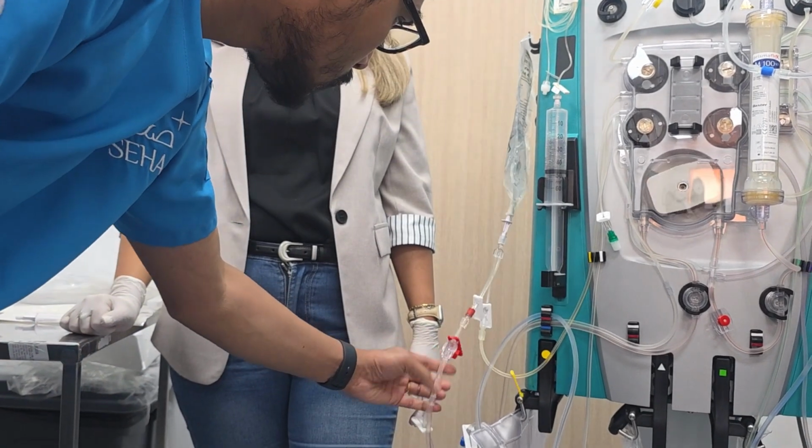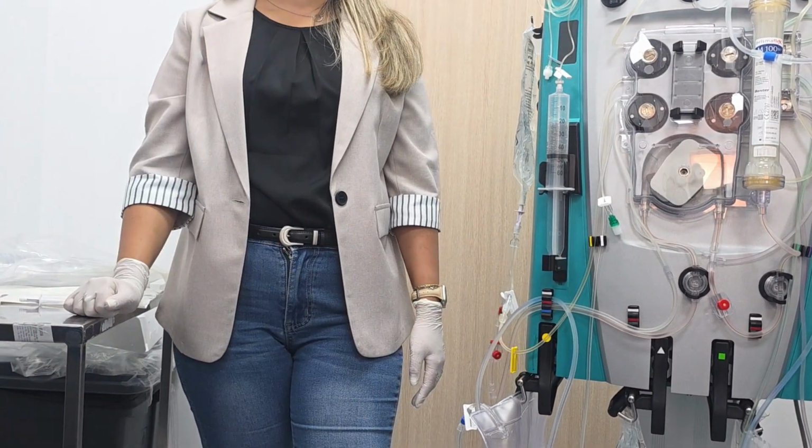Don't take blood samples from the triple lumen, because you're already having mixing, and there is no calcium. If it is really an emergency, we have to stop and resume like that. If you do it like that, you clamp this one, then there is no backflow to here. Sometimes this can work.